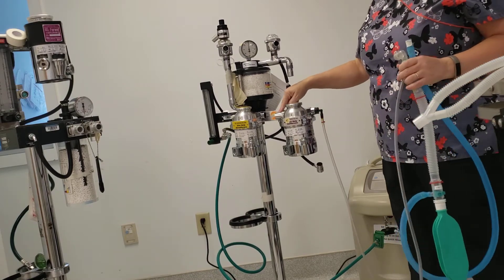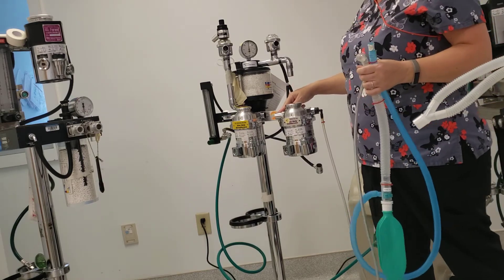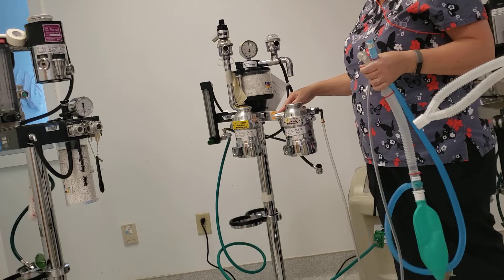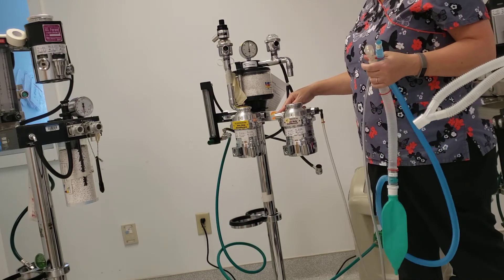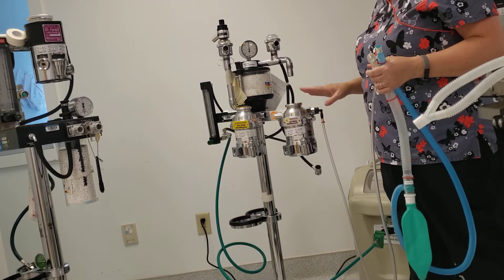It will not fit in the inlet port. If you want to have some rationale behind it, you have to get your oxygen and your anesthesia to your patient, and the best way to do that is to do it on the opposite side — the outside of the big riser.